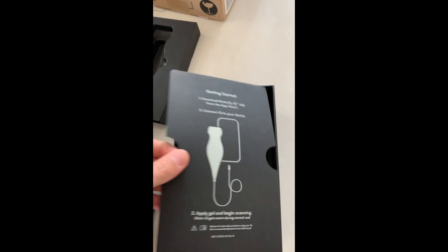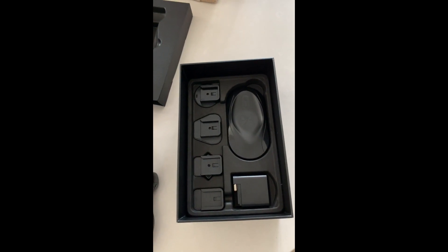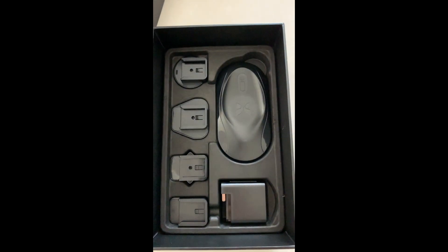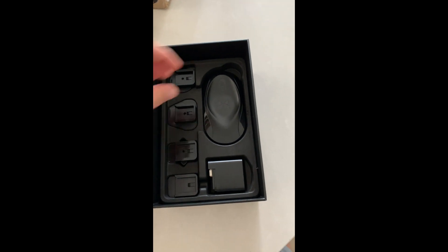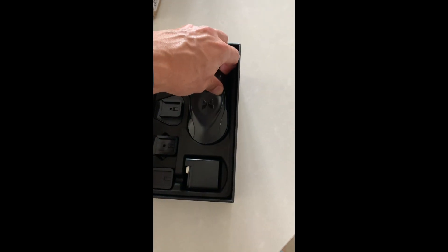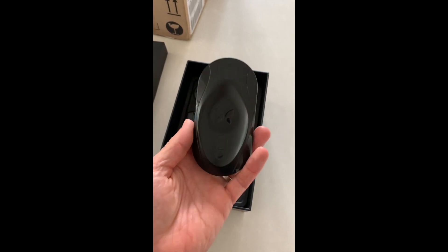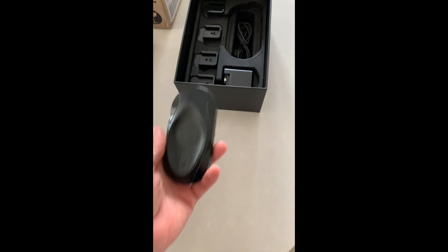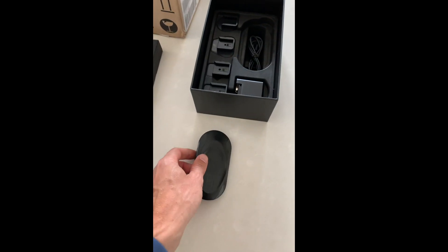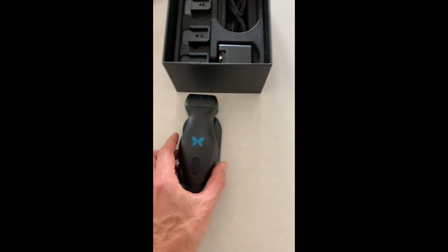Shall I lift this off? Let's see what's under there. Wow — a range of adapters for whichever country you happen to be wanting to scan in. Whether you be a third world country, first world country, whatever — they've got the plug adapters to fit. And this — a wireless charging device. It's all about wireless stuff these days, isn't it? Apparently, you get a rather subtle blue glow when it's charging. And there it sits.